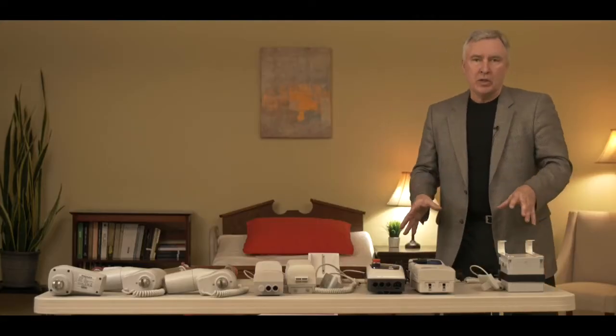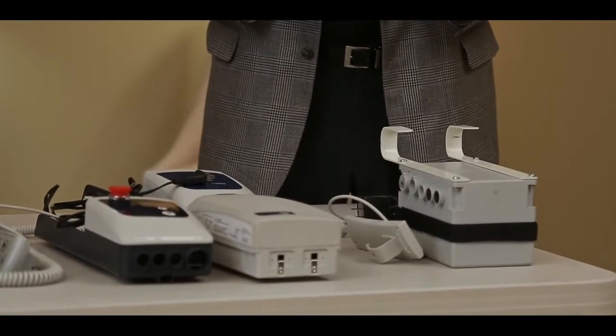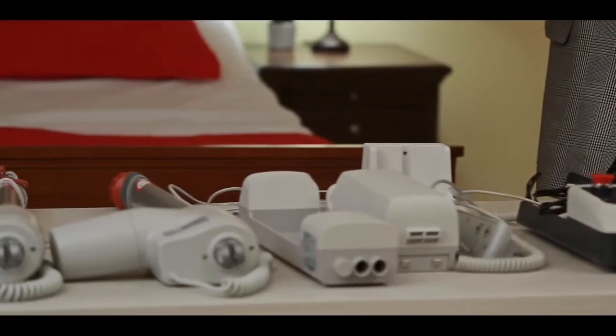Now the electronics package is the battery, the hand controls, the chargers, the things that power up your lift to make it function. The actuators are actually the motors that make the lift go up and down.